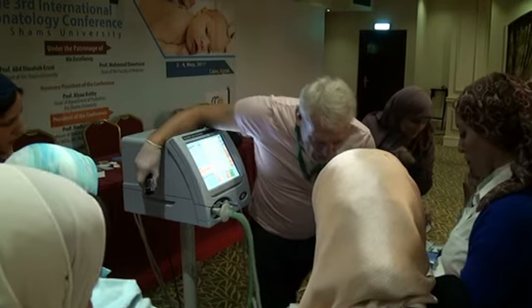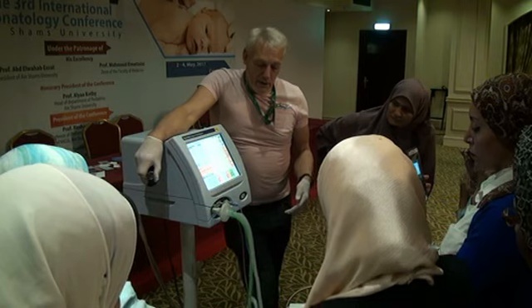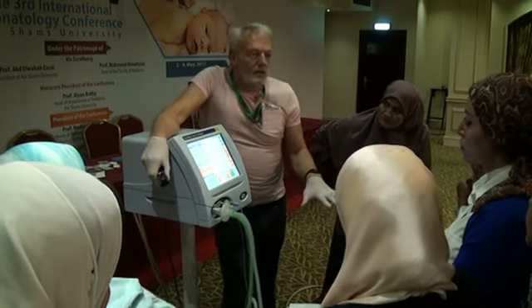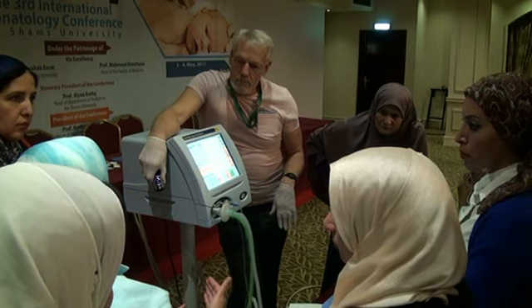So now we've let this baby go a little bit, maybe we can pop it up a little bit and we can start to recruit. I think you have to do what you feel comfortable with. You have the information, you deal with it, you make your decision. You stated after 5 minutes. When do you repeat it?